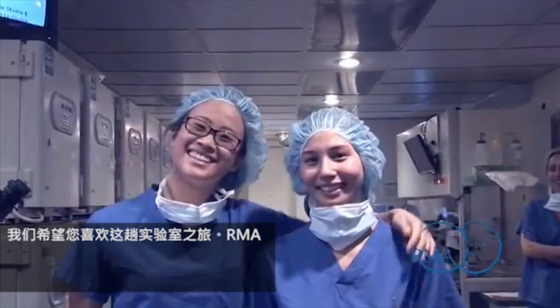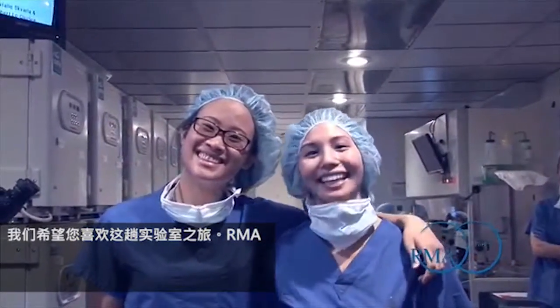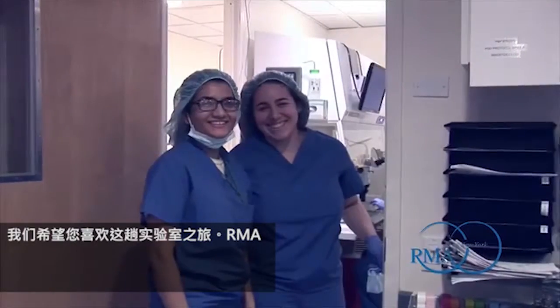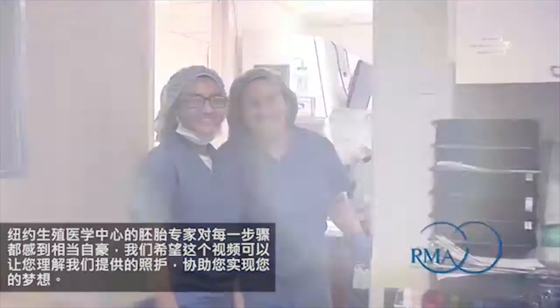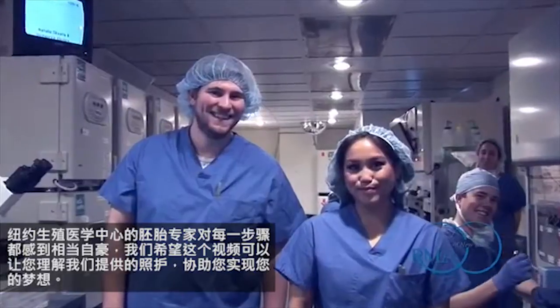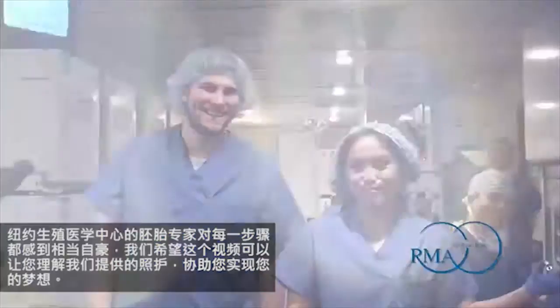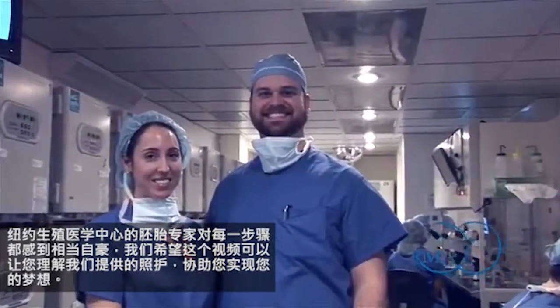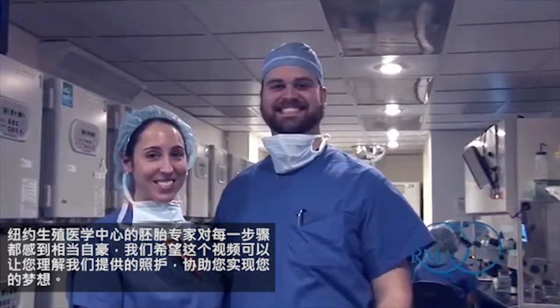We hope you have enjoyed this tour of our laboratory. The embryologists at RMA of New York take great pride in every procedure and we hope this video helps you understand the care they put forth in helping you achieve your dreams. Thank you.